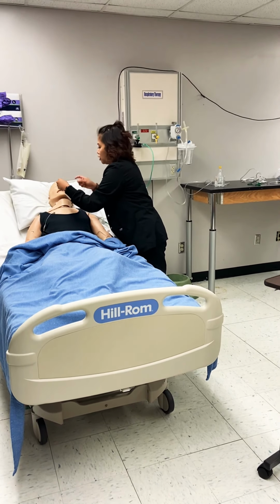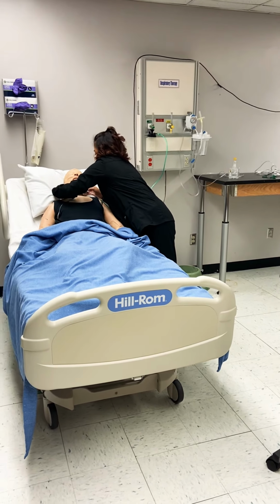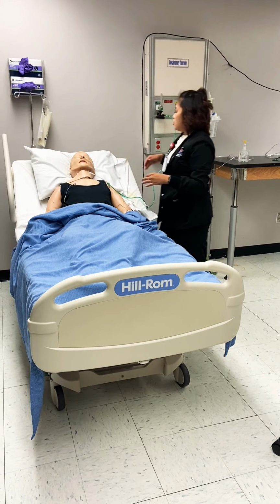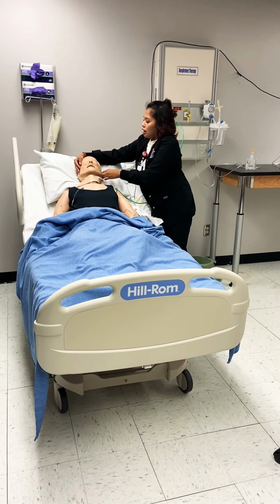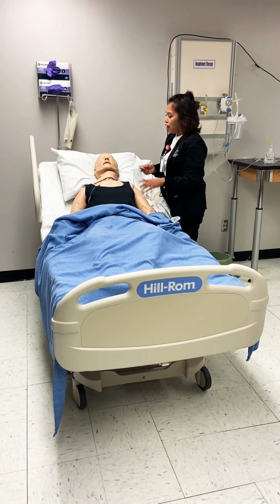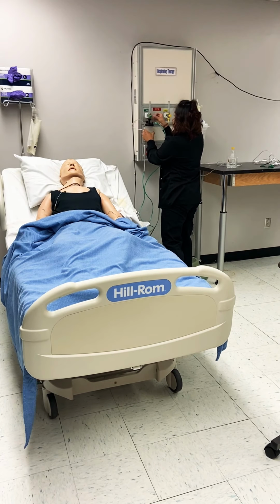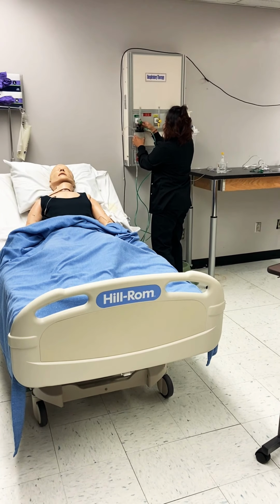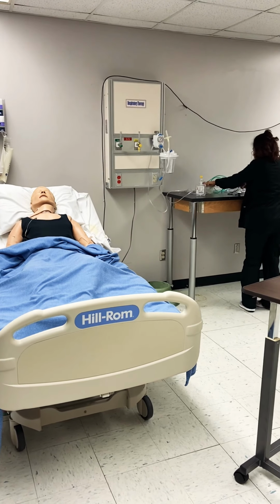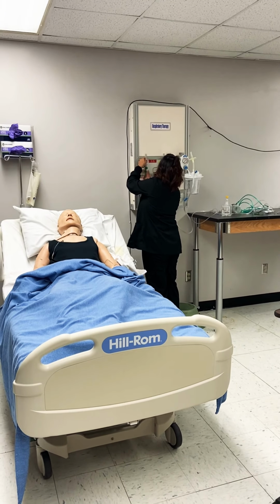So the same thing, you want to make sure the prongs are down, and then you put it around the ears. An advantage is it's easy to use, and there's a wide range of FiO2. A disadvantage is it's dislodging as well, so patients can obviously take them off, and infection risk. My next device that I'm going to talk about, I'm going to use a Christmas tree. So before I start introducing that device, I'll connect that for you guys.